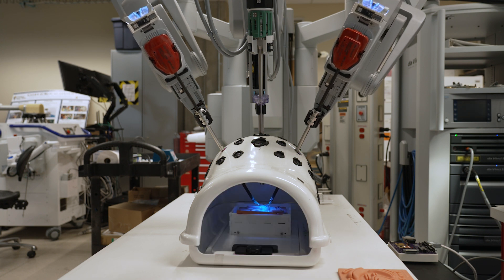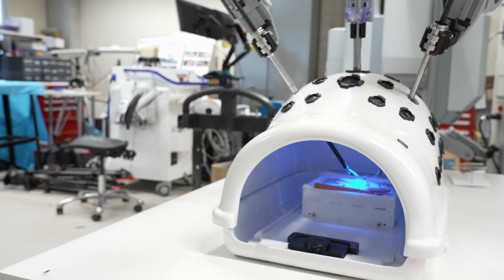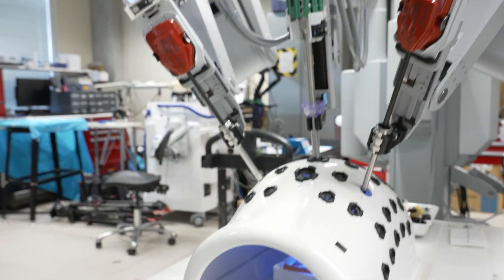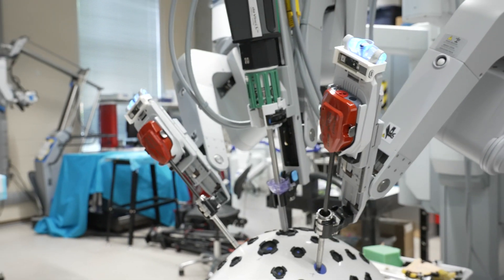Current sutures can't be used for this today because they are only visible in the visible spectrum. They're a color we can see with our eyes, but if you're performing surgery it's quite messy. There will be blood in the surgical field.